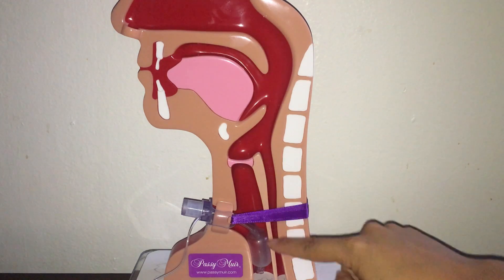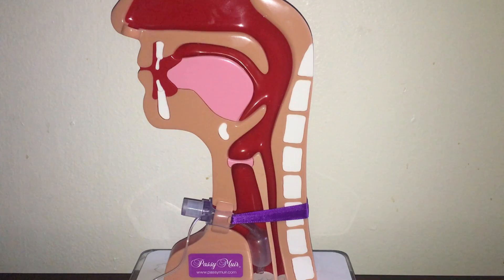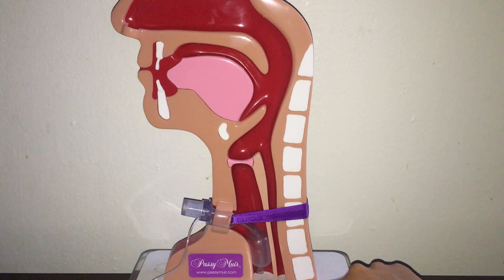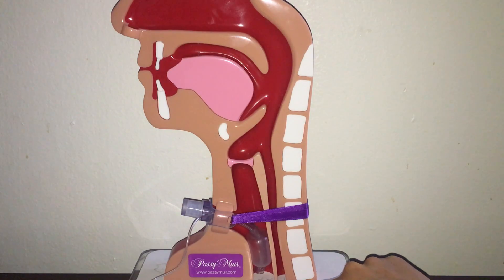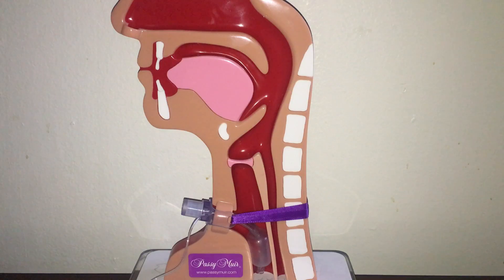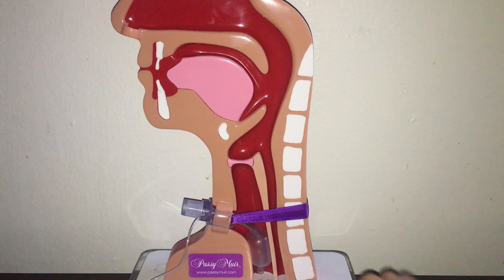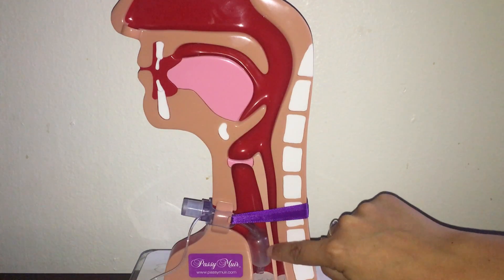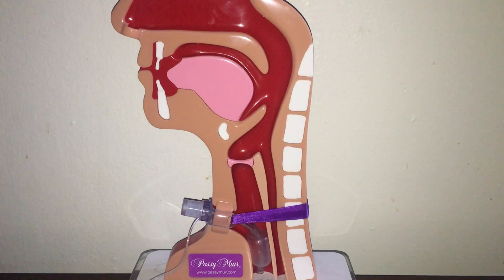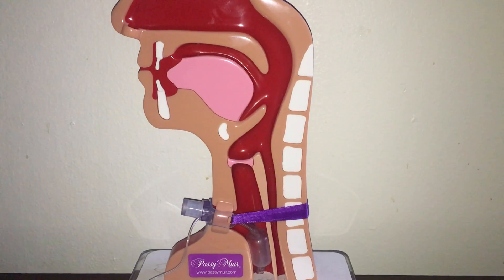This shows a tracheostomy tube with the cuff inflated. When the cuff is inflated, air flows in through the tracheostomy tube and into the lungs, and on exhalation, air flows back through the tracheostomy tube into the ventilator tubing or out through the trach. When the cuff is inflated, little to no air flows around the cuff and through the upper airway, so the patient is unable to produce voicing because air is needed to flow through the vocal cords for them to vibrate.